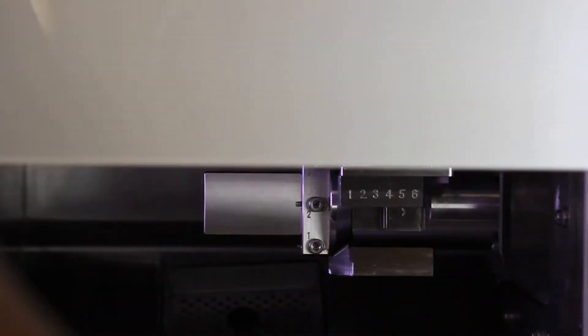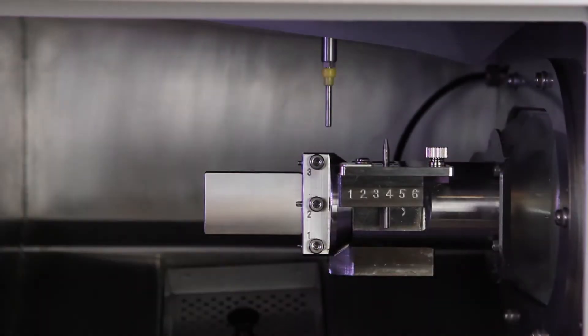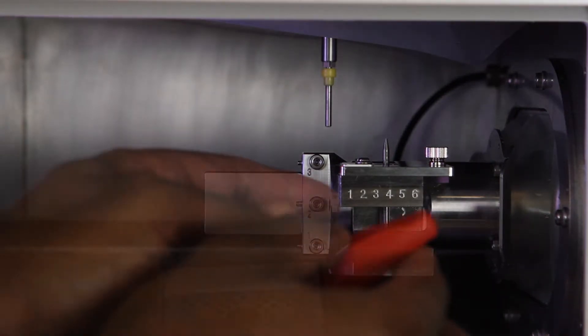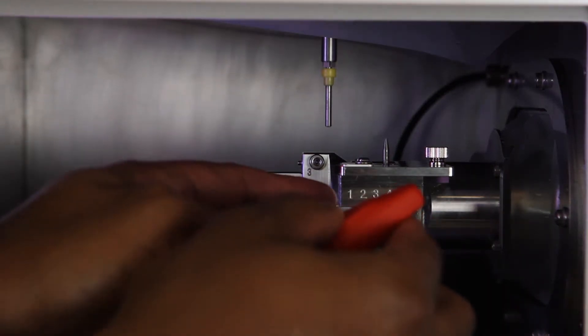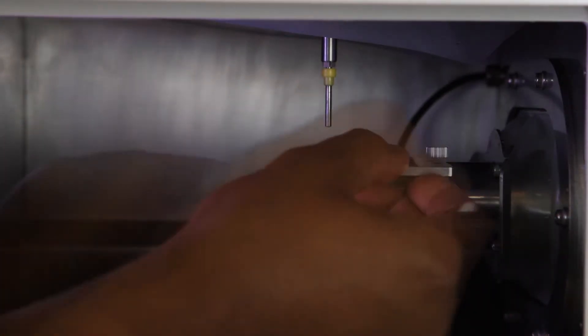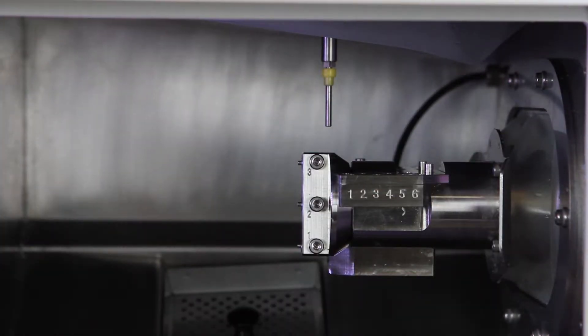Before beginning this operation, open the front cover and remove any workpieces or correction jigs placed in the mounting part using the hexagonal screwdriver.